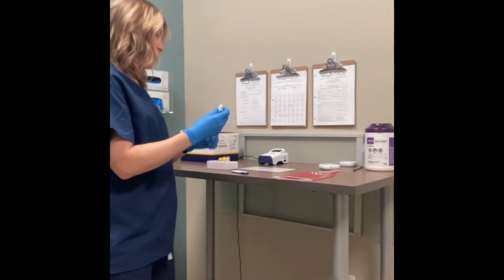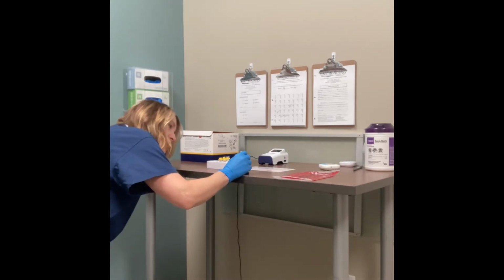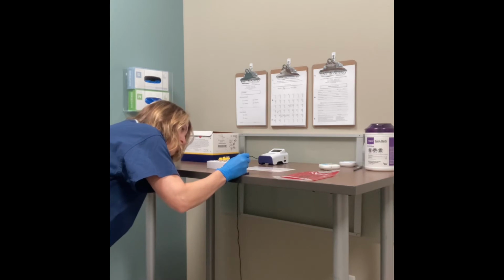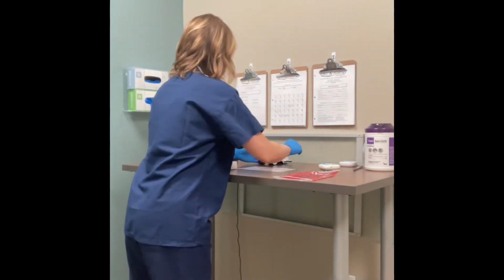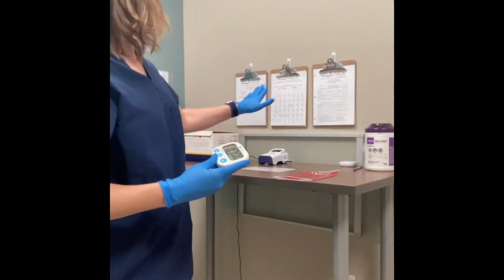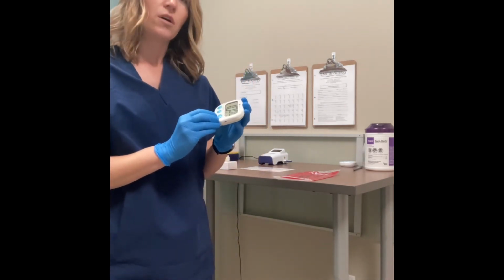So once again, this is very precise. I like to get down to eye level. Make sure this vial is straight up and down and you're approximately 1 inch away from the cartridge. And squirt 3 drops on there. Make sure the bubble is good. 1, 2, 3. Suck up any remaining liquid. Now once the 3 drops are on there, you insert it. This particular test is a 10-minute timer. So it will run the test. I recommend that you do a 10-minute timer and then you can go back to your desk. So we'll come back for the results.